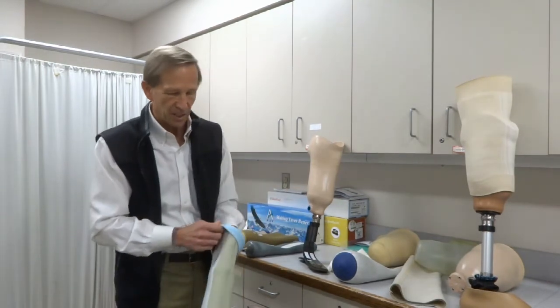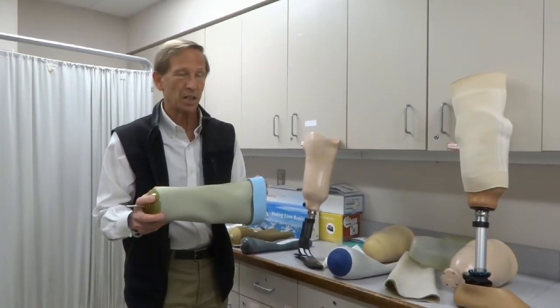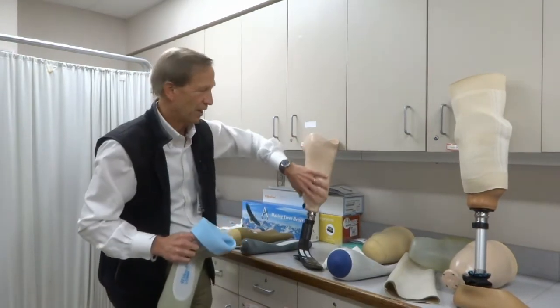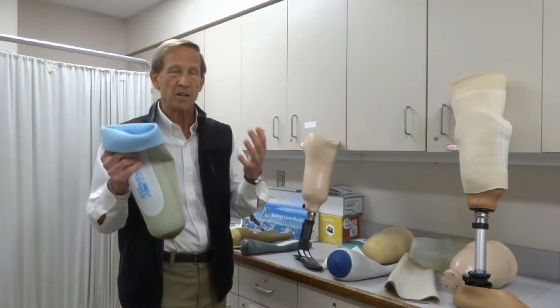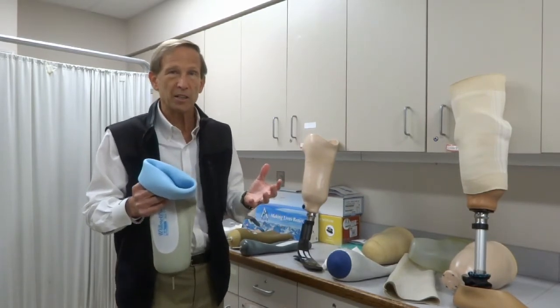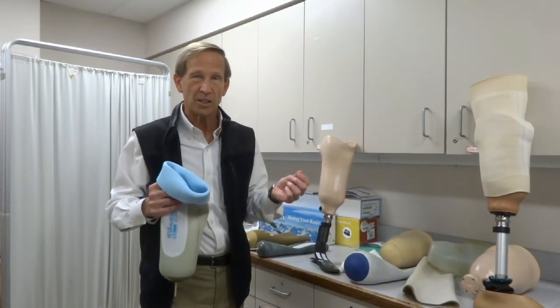Ultimately these materials will wear out. The prosthesis itself is a hard material that may last three to five years, but the soft interface material will likely wear out sooner. We typically order two gel liners per patient per year, so you could go through ten gel liners in the five-year lifetime of your prosthesis. It's important to follow up with your doctor to make sure you have a good supply of gel liners and socks, and to see your prosthetist to make sure the fit of the socket is satisfactory. There are many other problems that can occur — things related to blisters, sores, and ulcers — which would mean even more urgent return to see your doctor. Thank you for listening today.